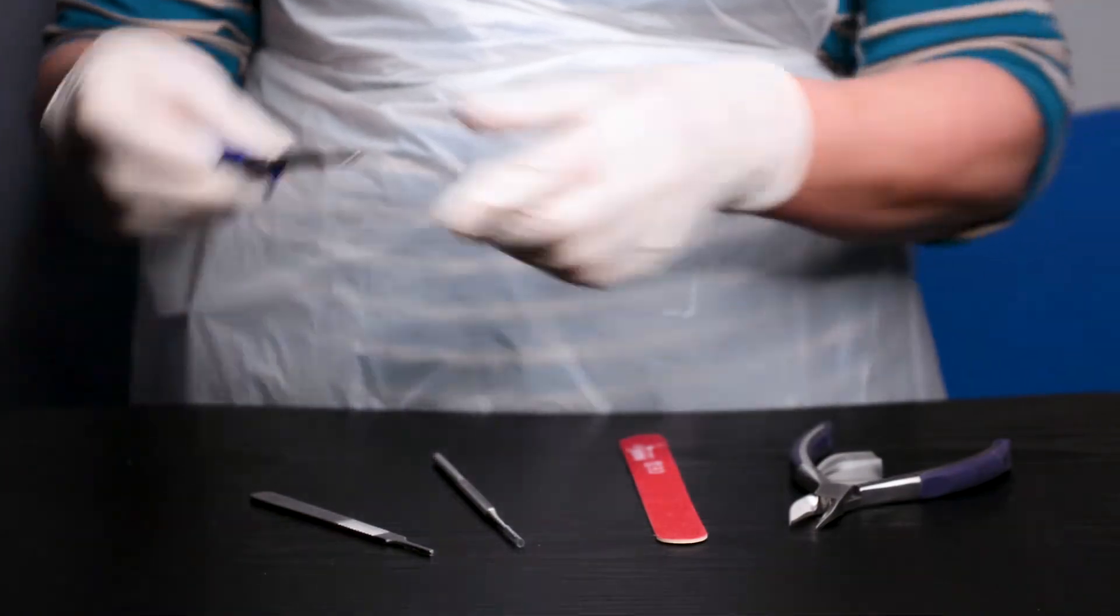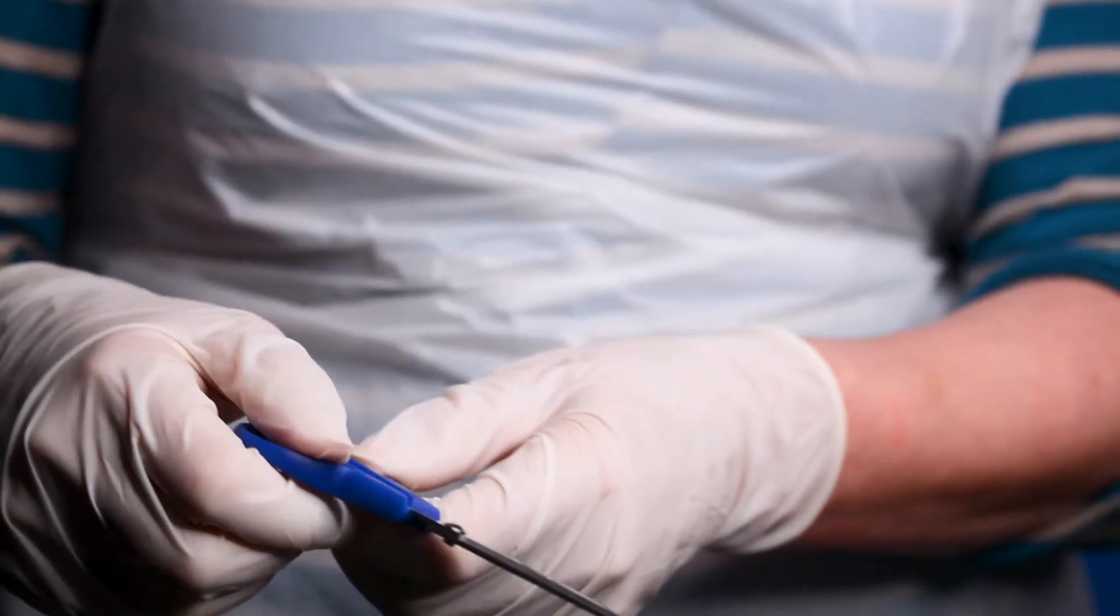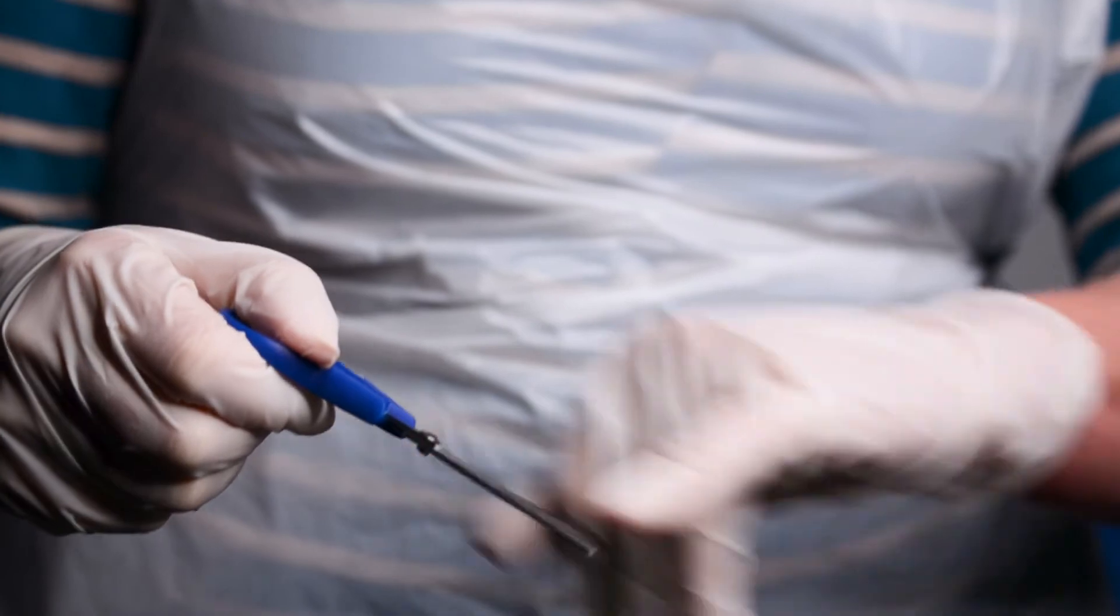The scissors have the additional feature of a ruler on one side which can be used to measure wounds.